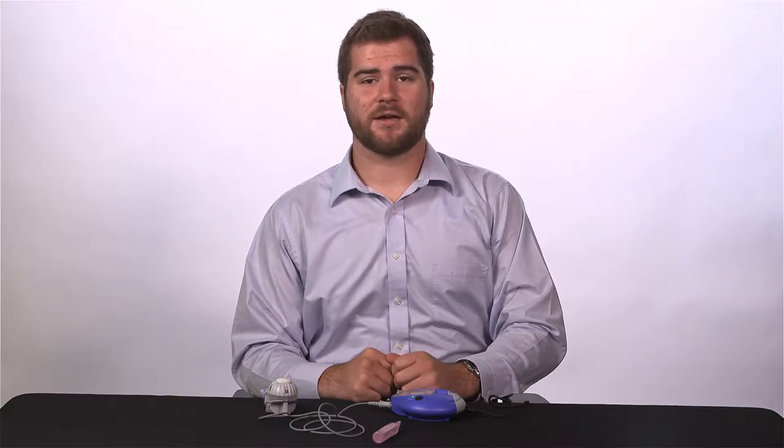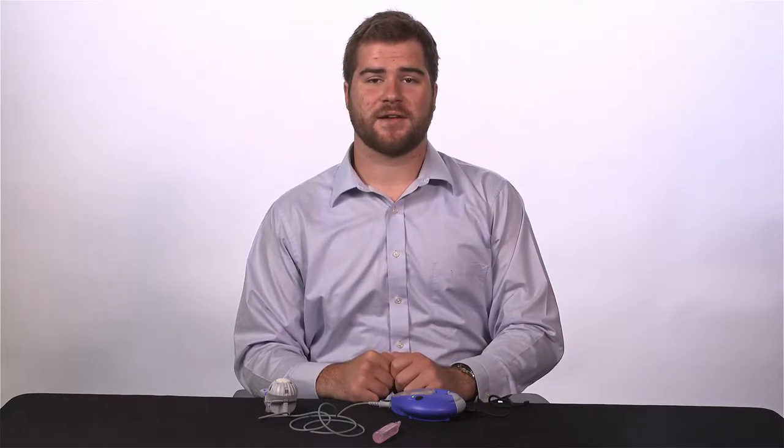The eTrack nebulizer is designed to send information on when you take your medicine. It does this by connecting to the hub that you have received with your nebulizer. In order for the nebulizer to send data, it must be connected to the hub.